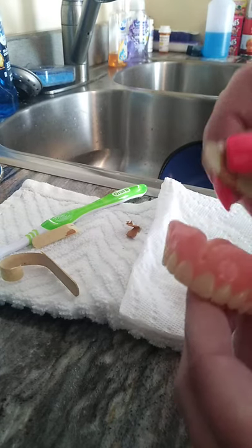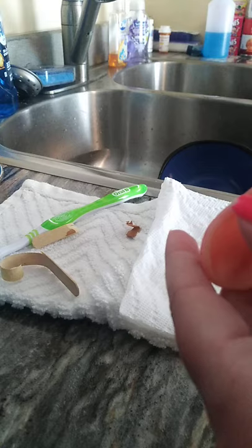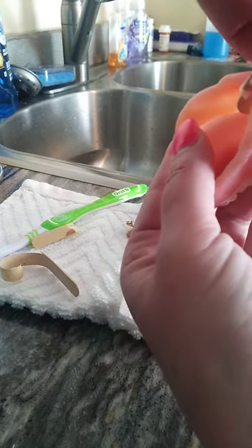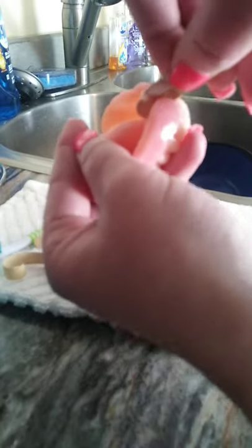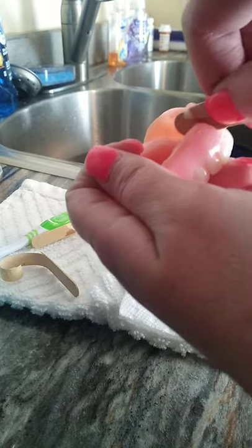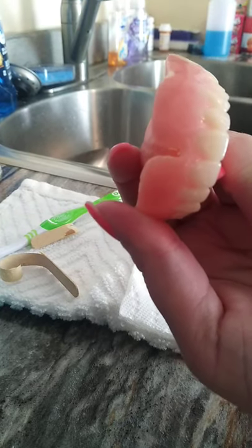So what I'm doing is I'm putting it right in here where the sandpaper part is, going down — we're inside. I put it right here and I just take off what I need to take off. This is pretty cool, actually, and pretty inventive. I did take quite a bit off before I started the video. You just go side to side, take out whatever you need to. As you can see, it's working — it's got the little shaded spots on.